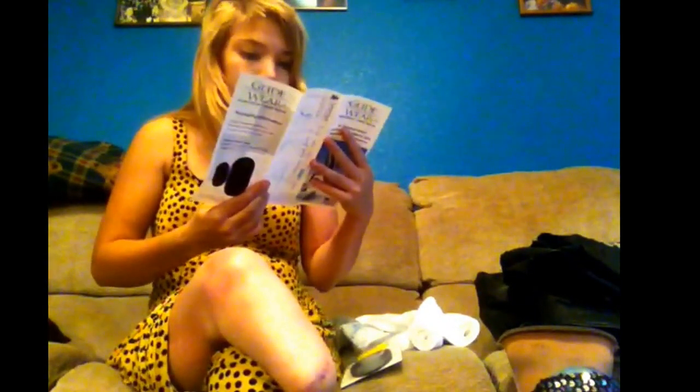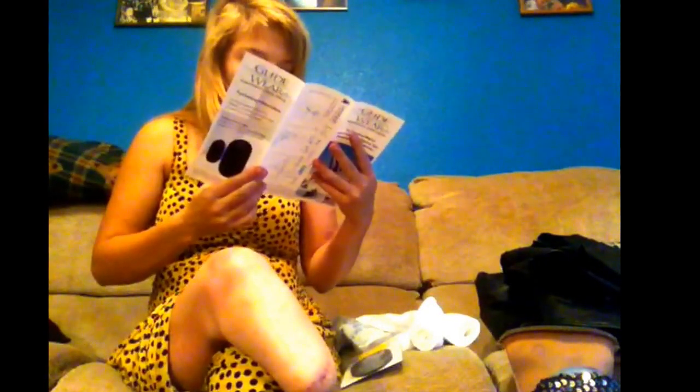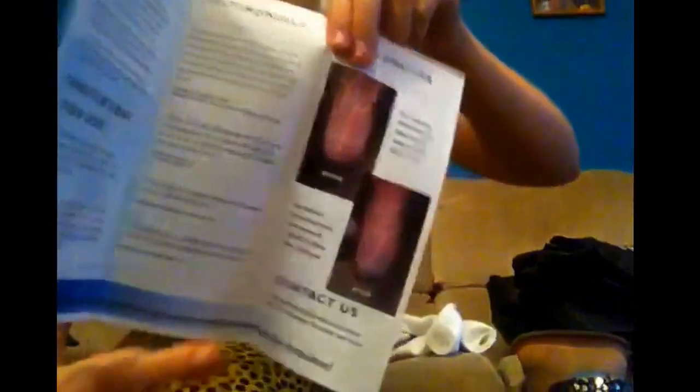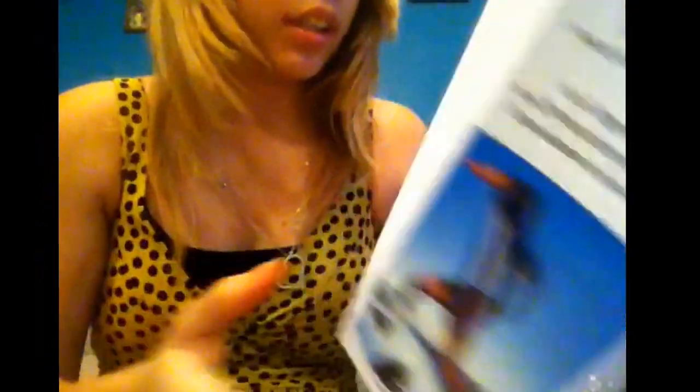Use daily to prevent future breakdown and provide peace of mind. Wash as necessary. I got the small one. Someone said they had used the Glideware patch with three patients and they all had great results — all had small wounds that fully healed with use of the patch. An APT from Maryland said it glides so easy, wouldn't be without it, stops all burning completely, love it. And here are some before and after photos — he had an infection. I had something that looked like that a while back.